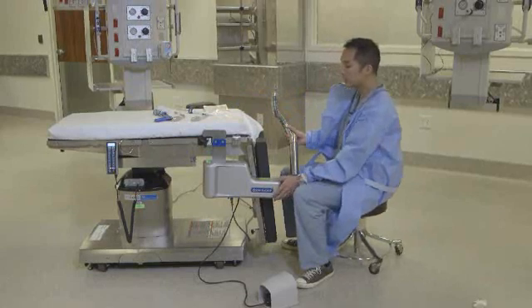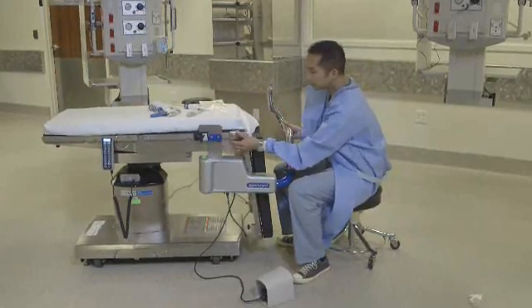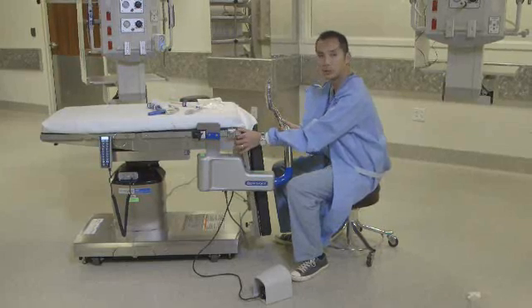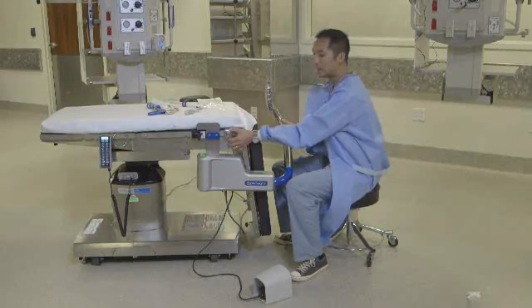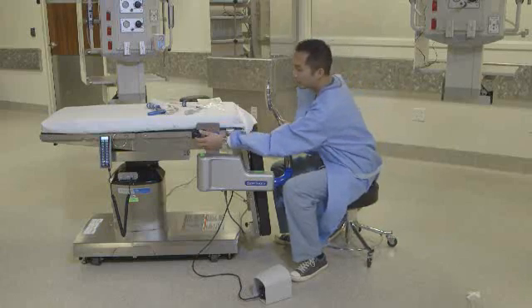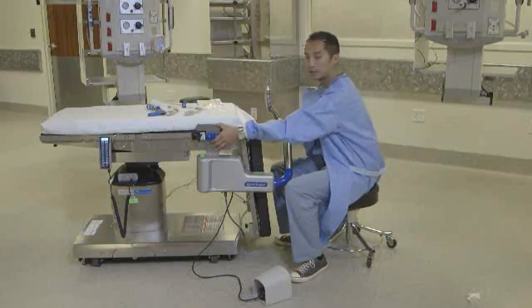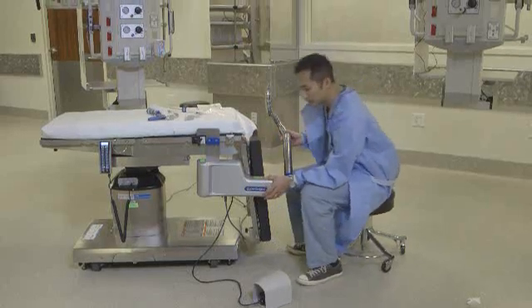As you can see here, mocked up on this particular operating room table, is a bracket to represent where your stirrups would be located. If you're using an Allen stirrup or a Yellofin stirrup, you'd mount that stirrup on this bracket on your table rail towards the front. The bracket for the Ally UPS goes behind, and that's how the instructions are laid out — it needs to go behind the bracket for your lower extremity stirrups.